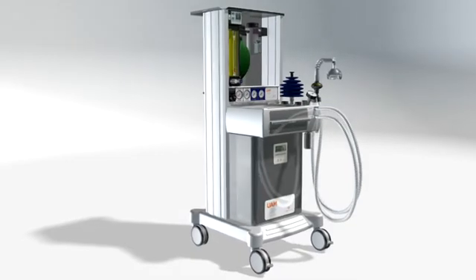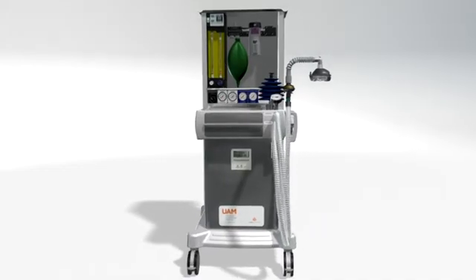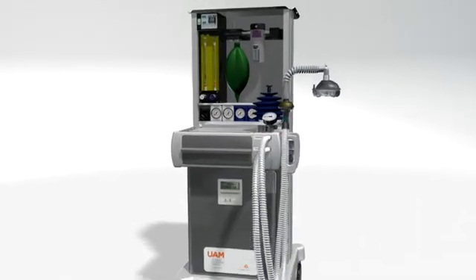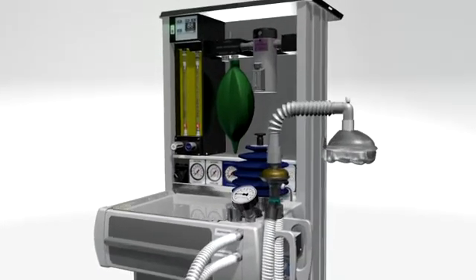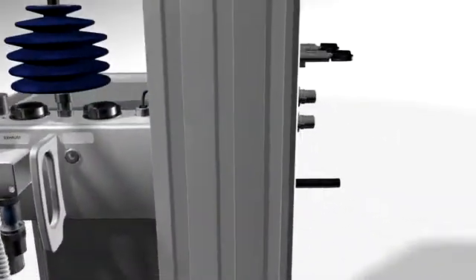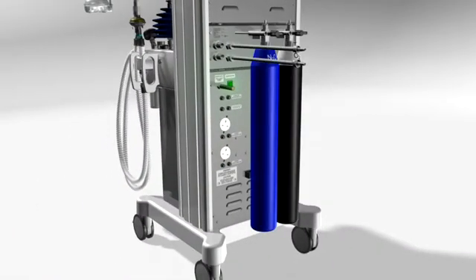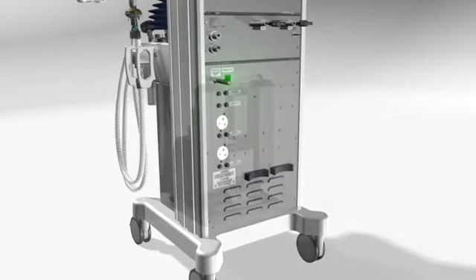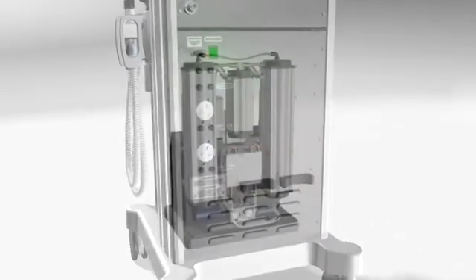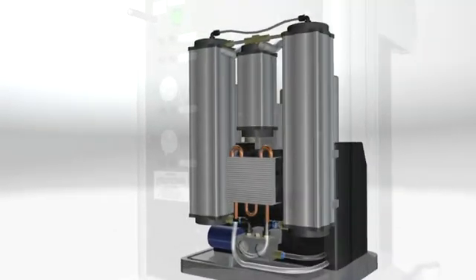The universal anesthesia machine ensures that an adequate supply of oxygen and anesthesia is always available to meet patient demand, no matter what the environment. The UAM provides several ways to deliver oxygen, including connections for cylinder and pipeline. Most importantly, the machine produces its own oxygen, using an integrated concentrator that converts room air into 95% oxygen.